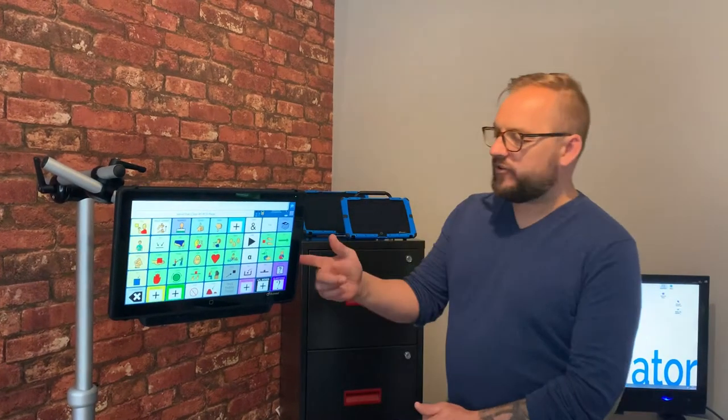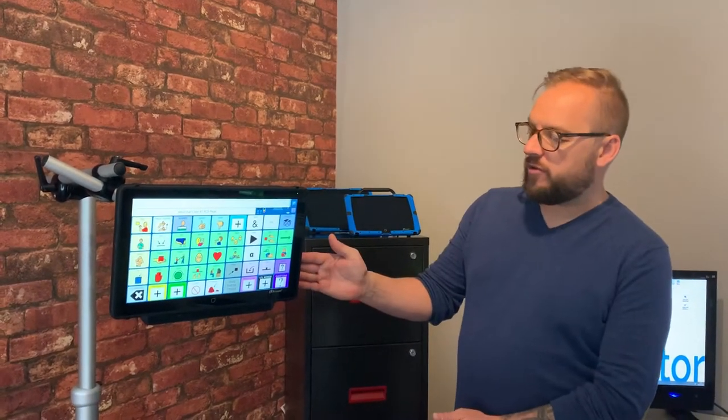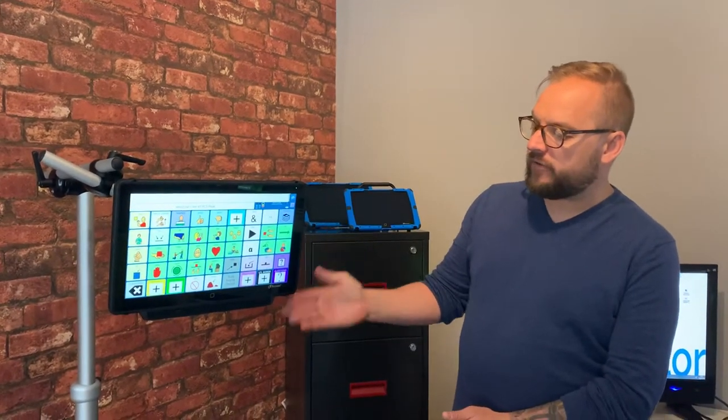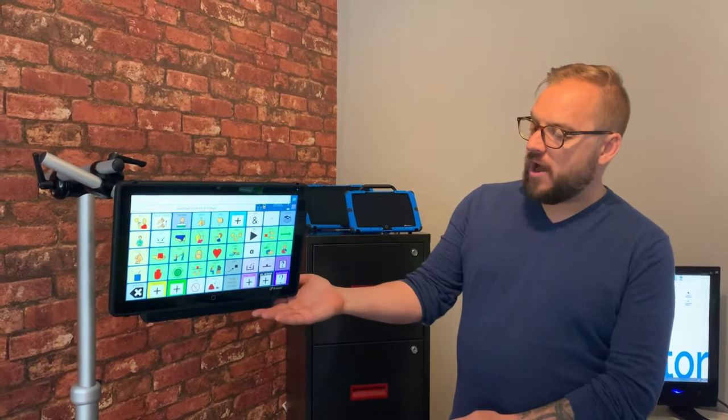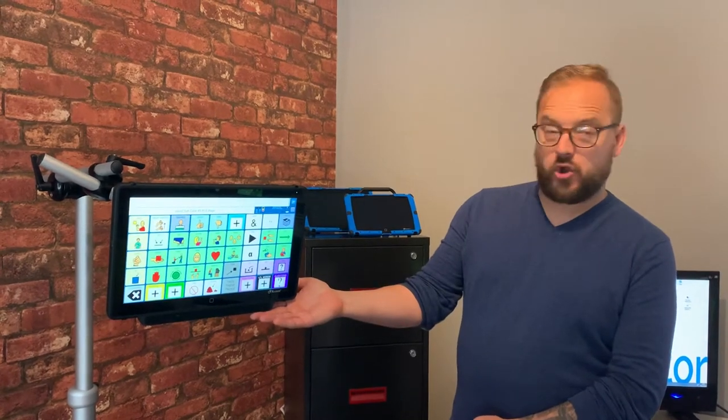Hi, I'm Mark Street and I work for Liberator Limited in the UK. In this video I want to share with you how we use the Accent 1430 device with the Eye Gaze Look.